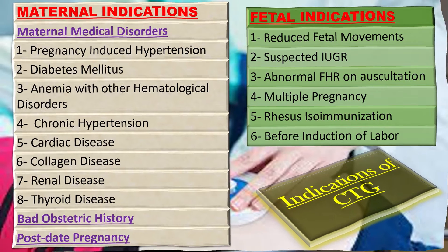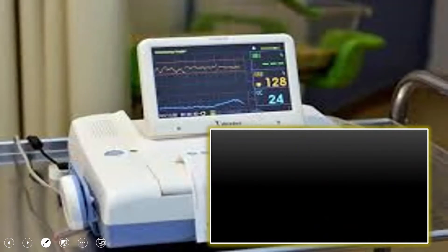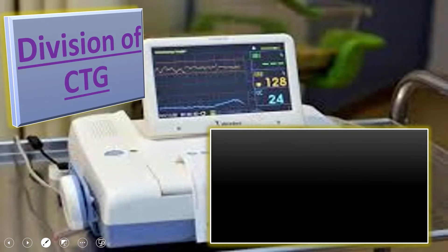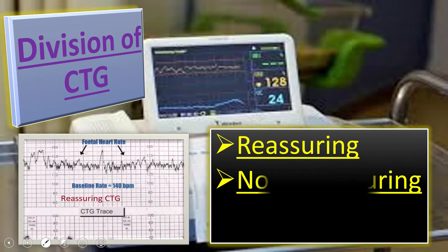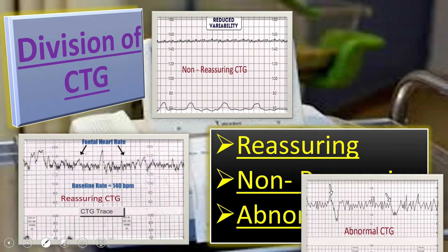Now coming to the division of CTG. Based upon the different patterns on CTG strip, we divide CTG into three main categories: first is reassuring, second is non-reassuring, and third is abnormal.